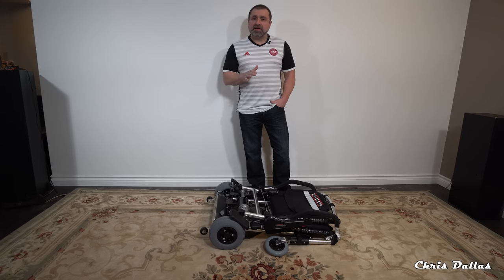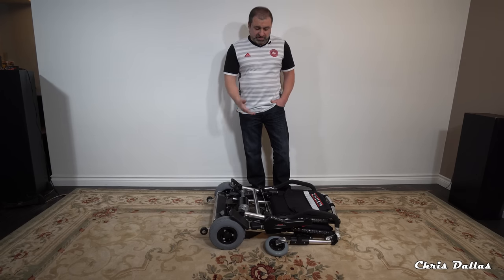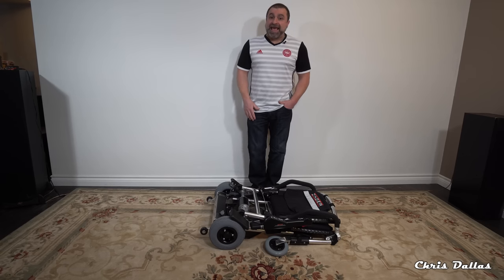You can take it with you and fold it up. It folds up in one second — put it in the trunk of your car, backseat of your car. It's not very heavy, even for a female to lift, an older lady — no problems. 37 pounds is not the lightest but still it's not heavy work.